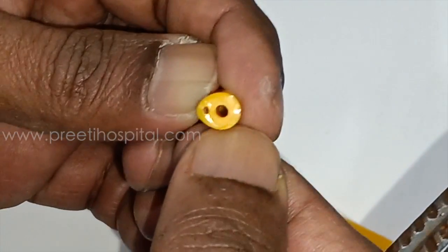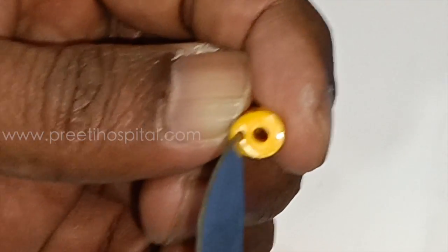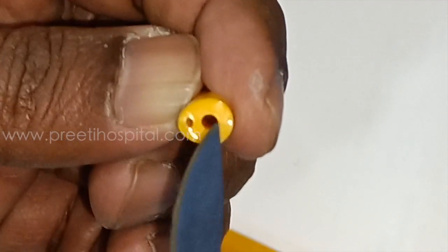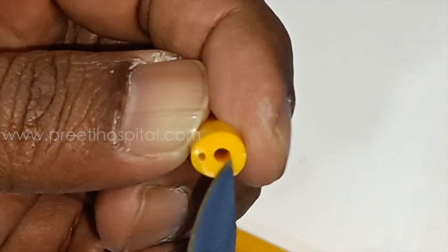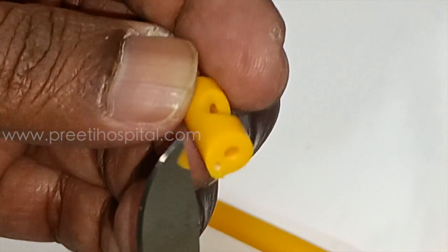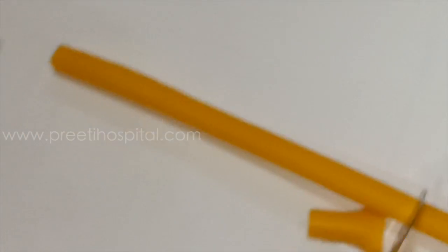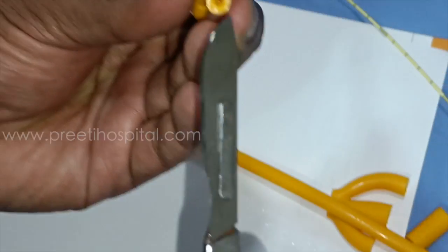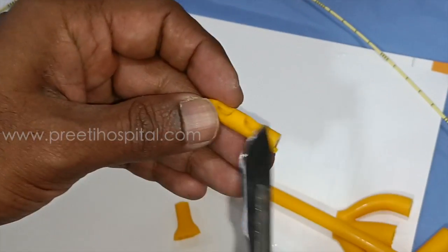Again, at the level of the balloon, the lumen is slightly bigger, and this is the channel for balloon inflation. Now the balloon has ended here — only two channels are there: one is for the irrigation, another is for the outflow.